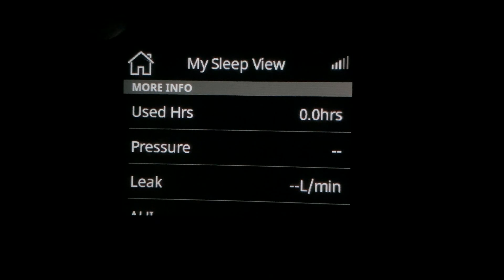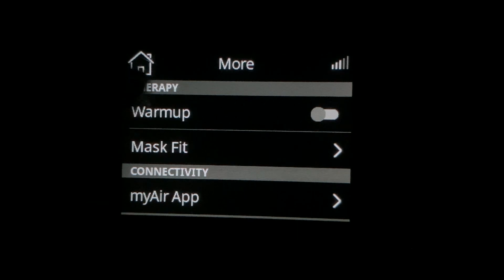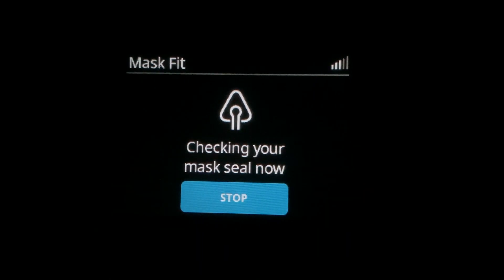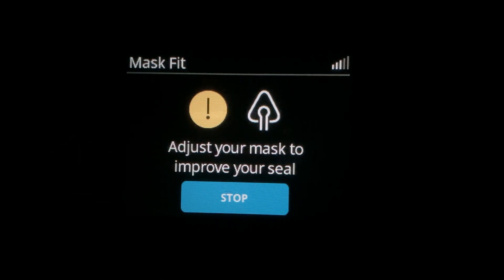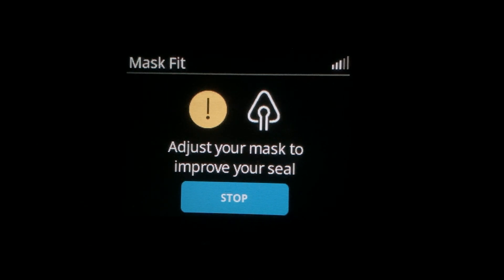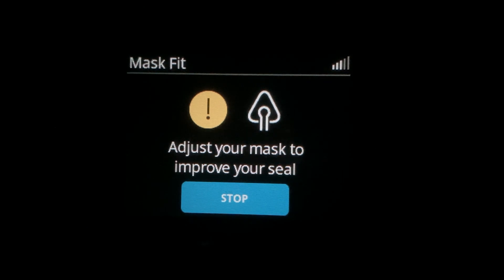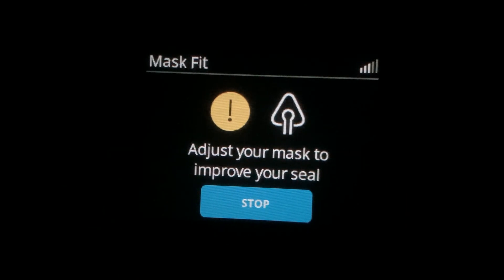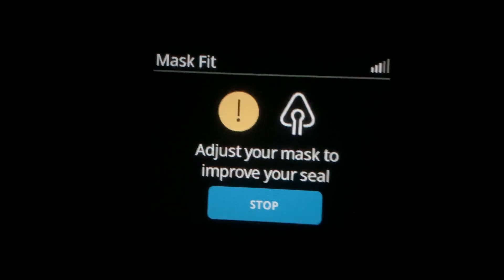One way to check for leak when you're starting therapy is to go to your home screen, go to more, and then use the mask fit option. Here I'm going to hit mask fit and then say start. It's going to pressurize my mask at the average pressure used during the night. If I have an adjusting pressure or a ramp, my machine is going to start at a lower pressure than its average, meaning I cannot set my mask at a good position for the average pressure by just turning the machine on. But if I use mask fit, it allows me to check and see if I'm having leak at my average pressure, and if I am I can adjust my mask before going to sleep. You'll notice here it's telling me I have a leak, and if I made adjustments I would be able to get that to go away and get a better seal.